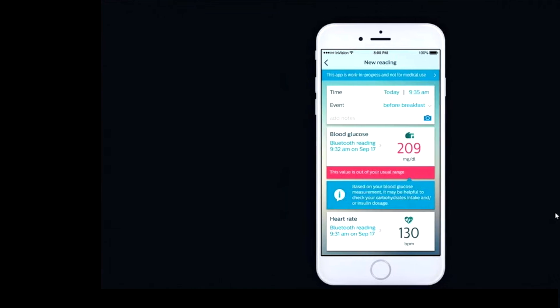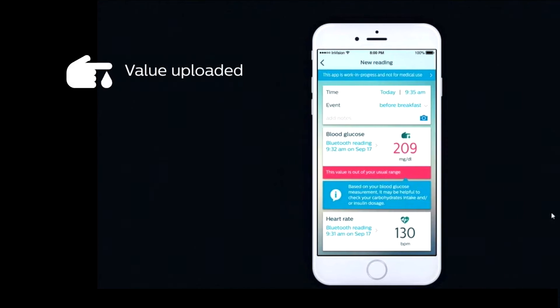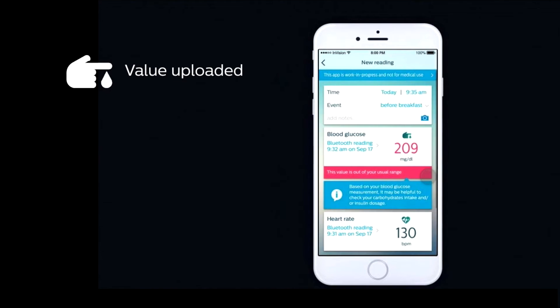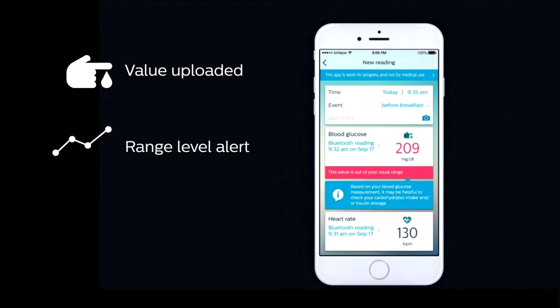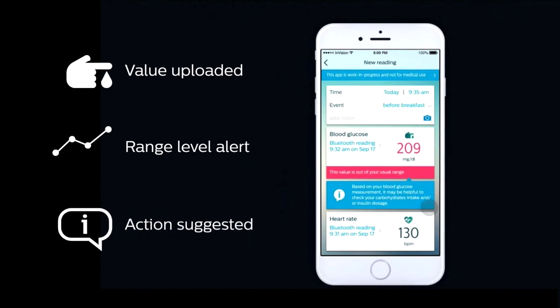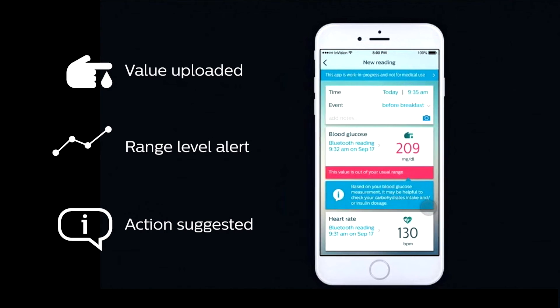By clicking on the bar, which allows them to navigate to the Diabetes Manager screen, they can see an uploaded Bluetooth reading, or if they want to, they can enter it manually. Here you can see that the reading is out of range, and so they get a flag that tells them that the range is out of the limits they've set for their upper or lower blood glucose values, and they get a data-driven recommendation that suggests they take action to do something about their carbohydrate level or insulin use.